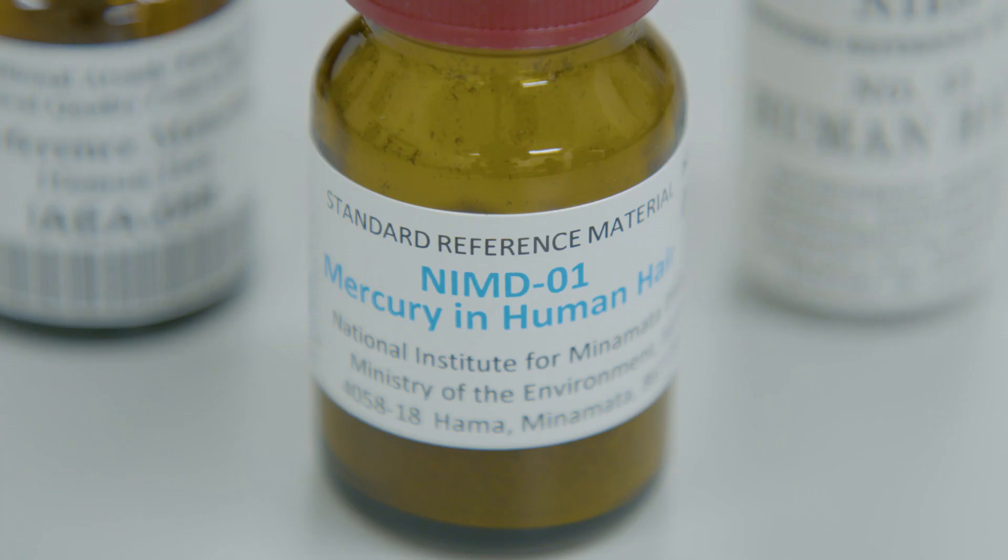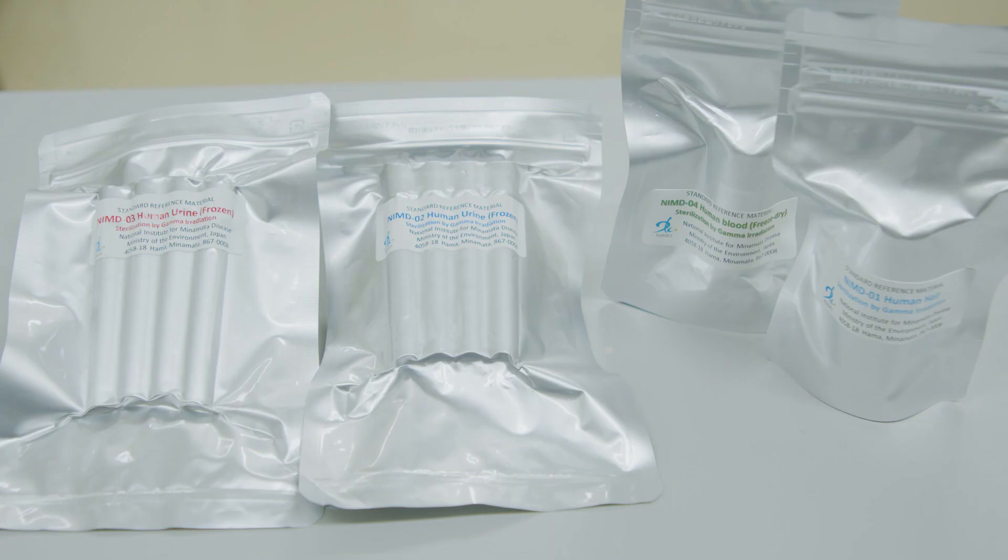To ensure measurement accuracy, it is recommended to use certified reference materials, which can be readily obtained from the NIMD in Japan.